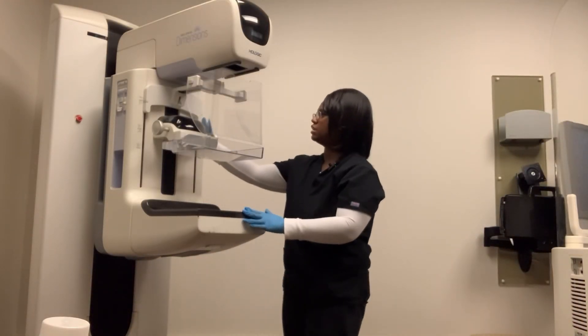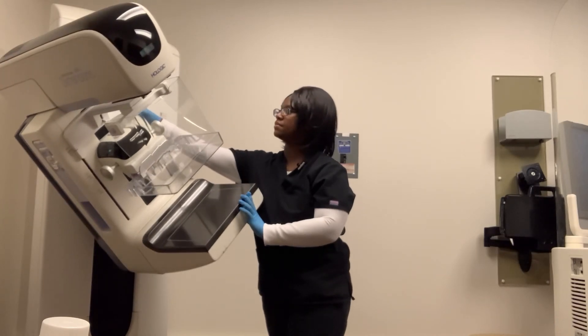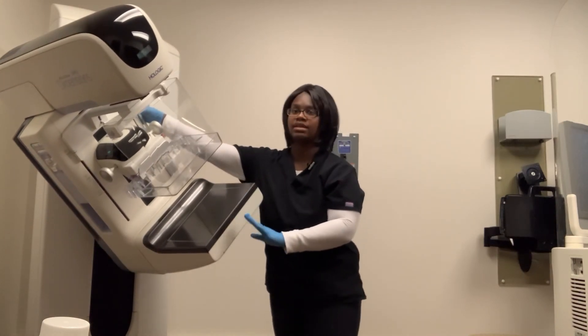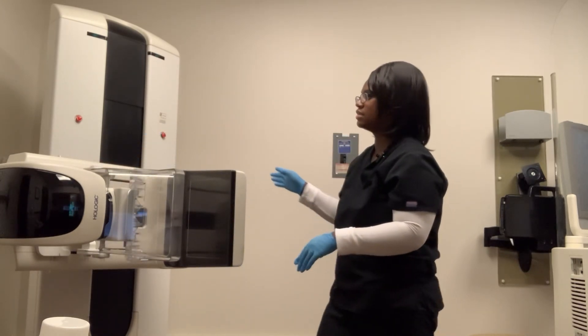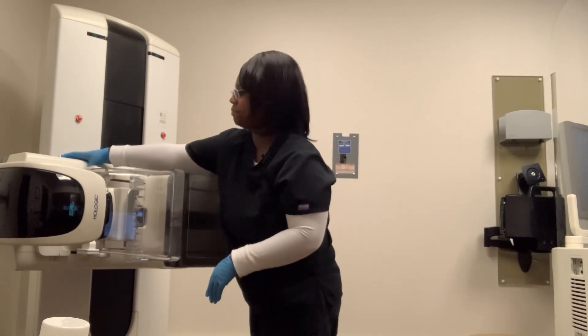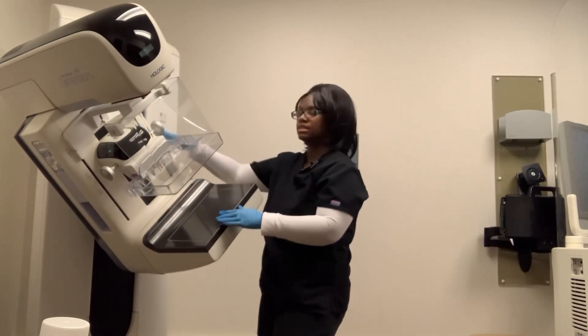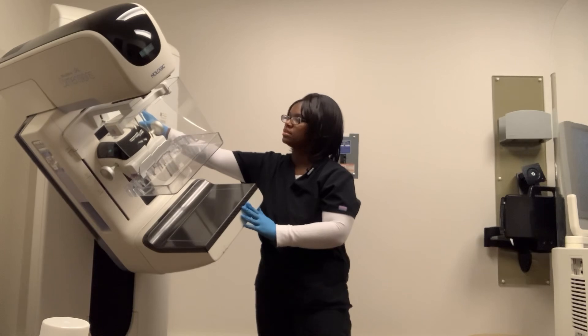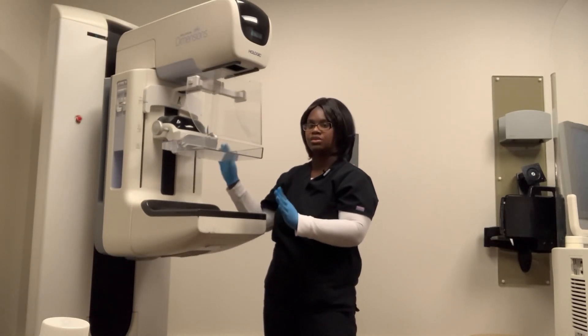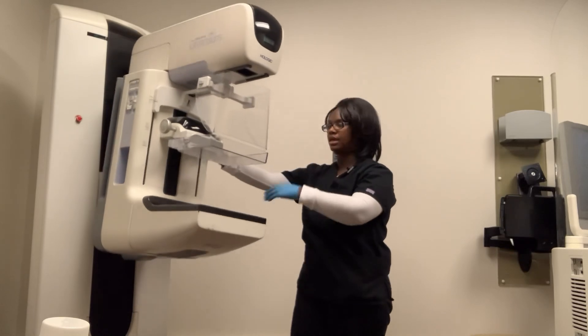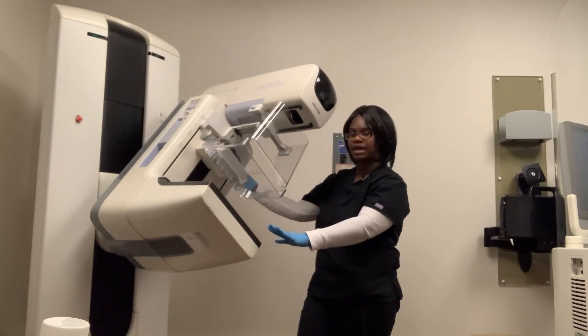Okay, to turn the machine, it goes this way. Or it can go at a 90 degree angle to the side like this. And then you can bring it back. This is at a 45 degree angle. And then you can also bring it the other way. And then bring it back.